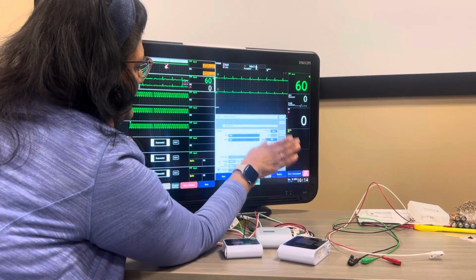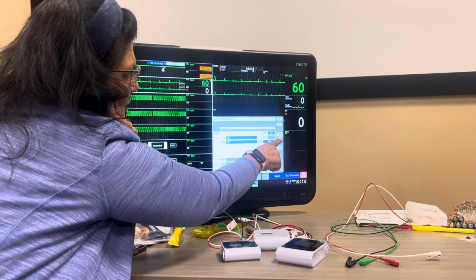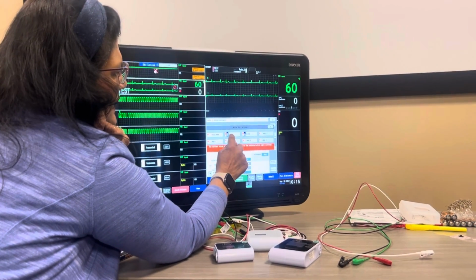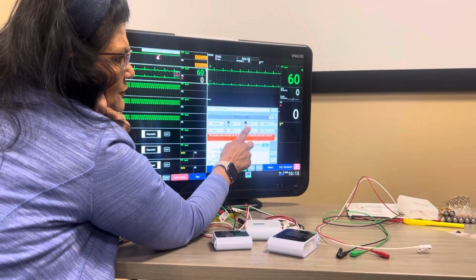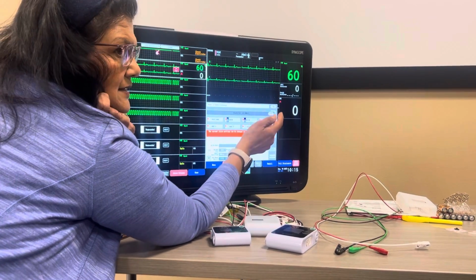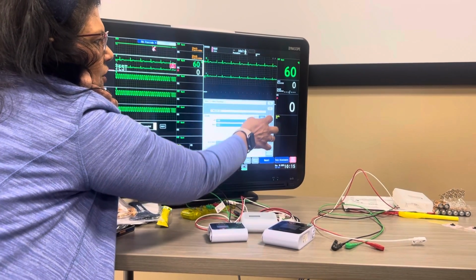The most important thing about this, if you don't remember anything else, is alarm at admittance, not adult, alarm at admittance. If I click on that, I have canine and feline. Canine is going to be 30 pounds and above, feline's going to be 30 pounds and below. So even if you have a small dog, it's going to be under feline, okay? It's just going to change your parameters so it doesn't alarm.